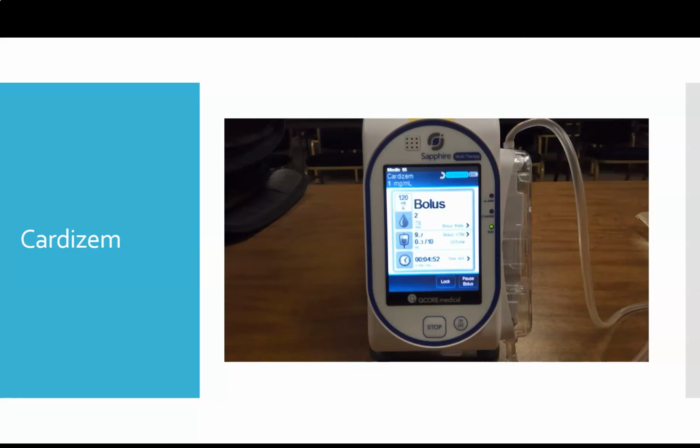And we never want to hang Cardizem and go in the general mode on the pump. If we were to go in the general mode on the pump with a Cardizem bag hanging, that takes the safeguards out. 100 milligrams of Cardizem is quite a bit of Cardizem to be hanging without any of the medication library safety net in place.